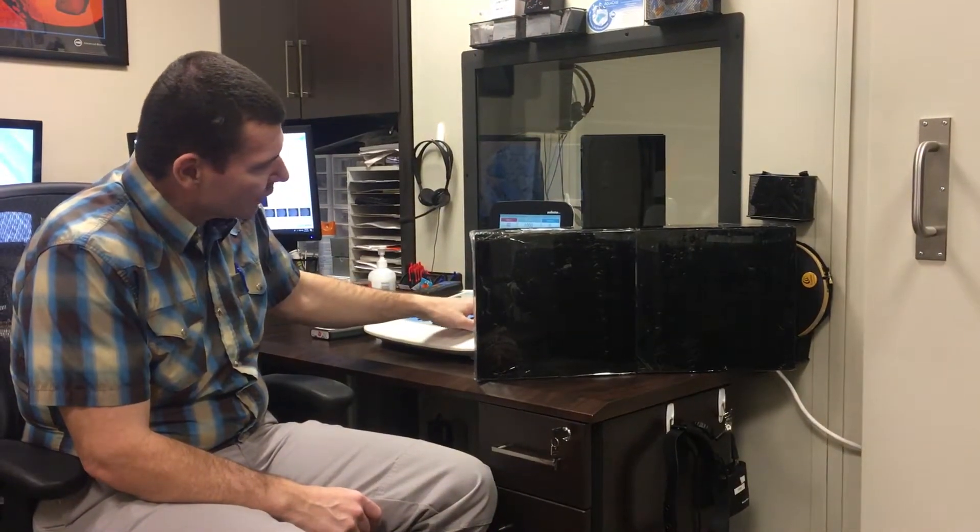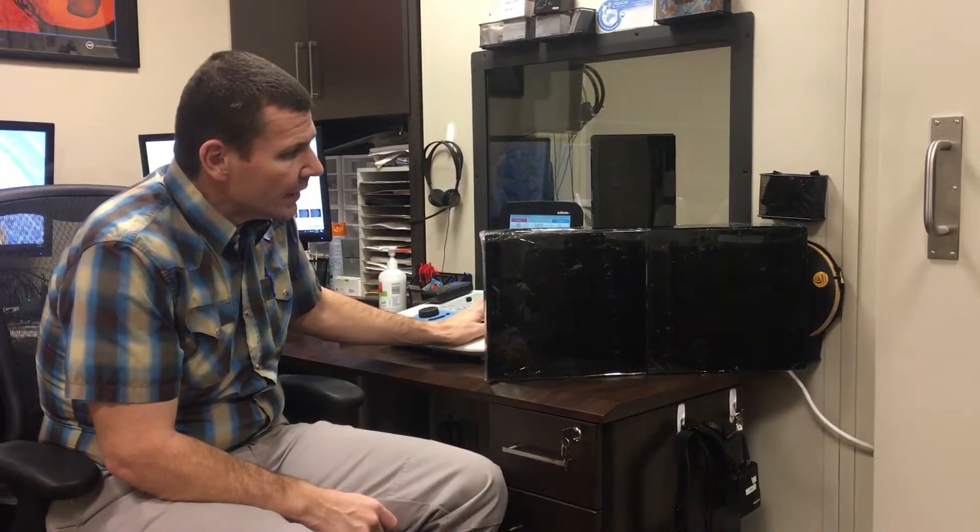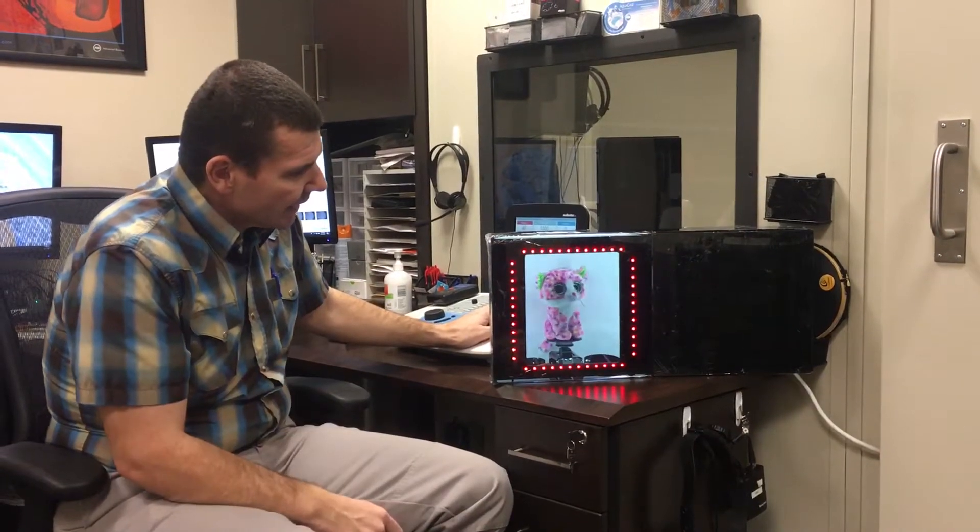One thing to make note of with the VRA Pro system: when we are using the hardwired controls, the LEDs are just the same color. They don't cycle through like you have the option with the remote, so it will be a fixed color with that. And that's the hardwired option with the VRA Pro 1.0.